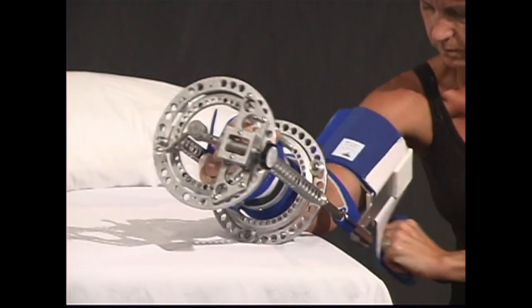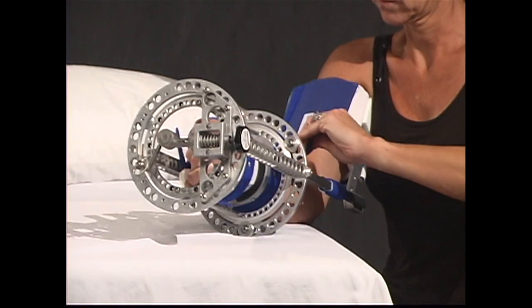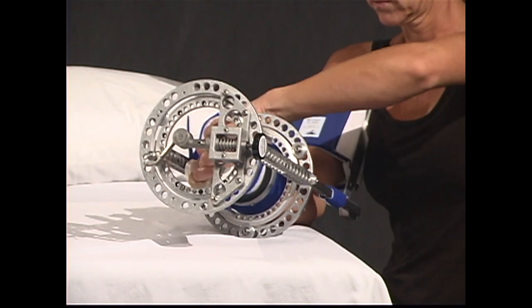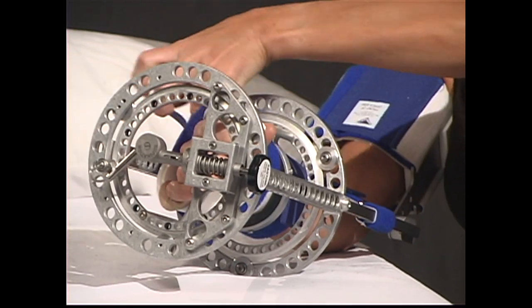Next, tighten the back of upper arm cuff, then tighten the 2-inch strap on your forearm. This may be either on the top or the bottom of your forearm. Finally, tighten the rest of your hook and loop straps on the wrist stabilizer.